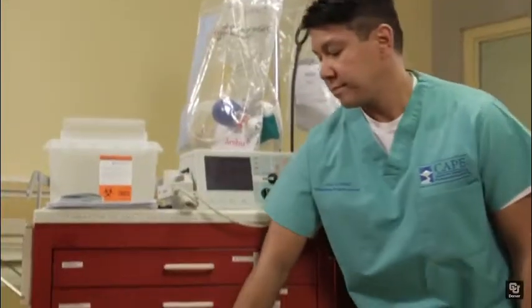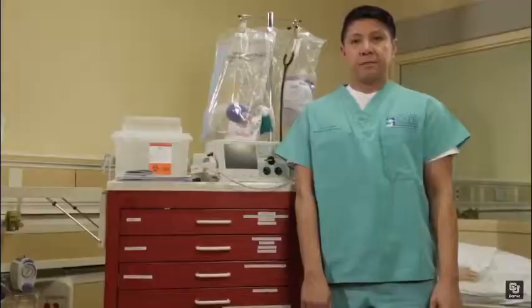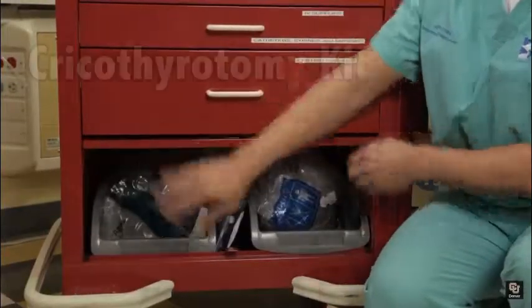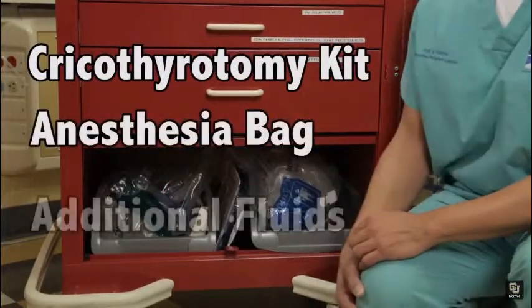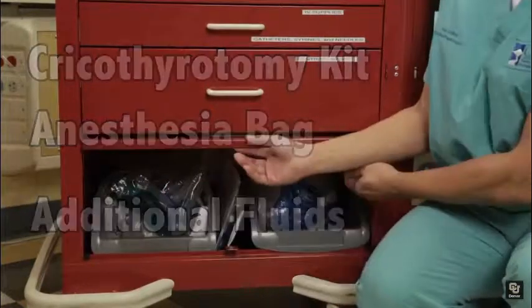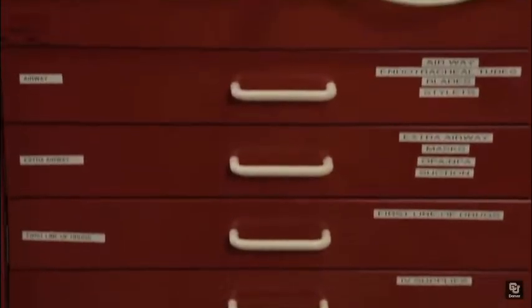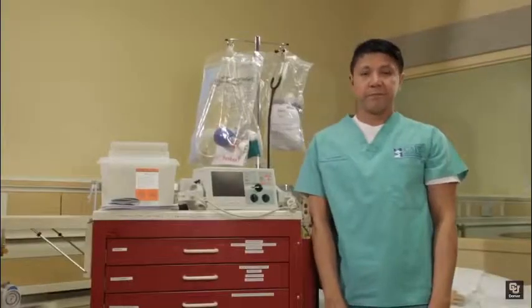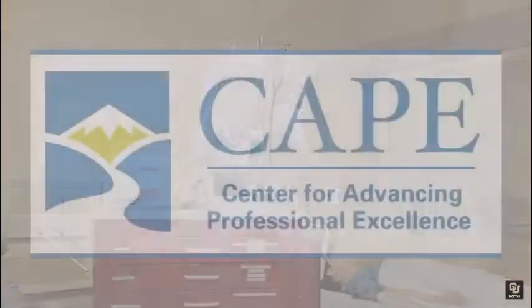The fifth drawer contains central line kits. The bottom compartment contains miscellaneous items including an emergency cricothyrotomy kit, anesthesia bag, and additional fluids. Please exercise caution when using the items from the cart around your colleagues and, most importantly, your patient. This has been an overview of the multifunctional crash cart you'll be using during your simulation exercise.